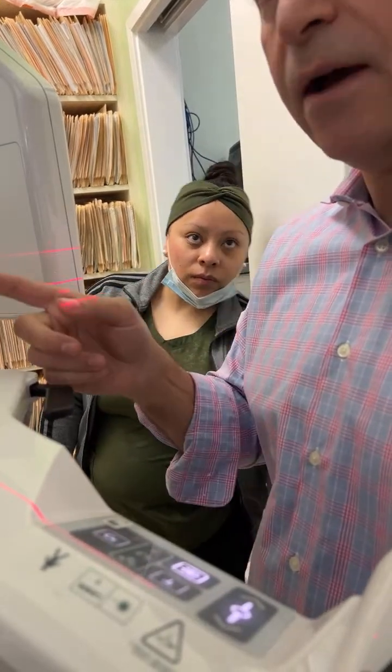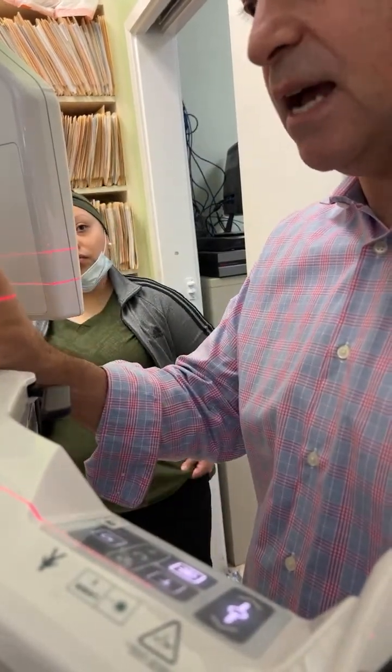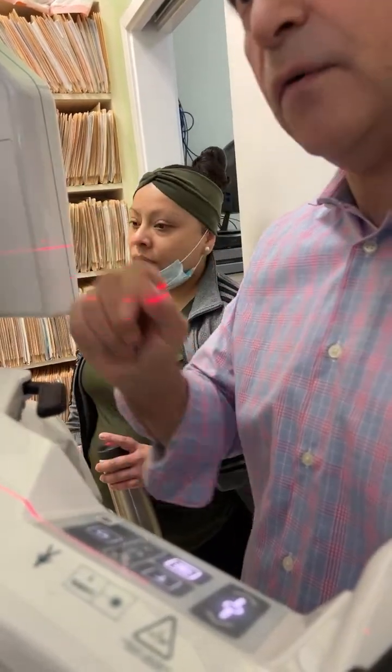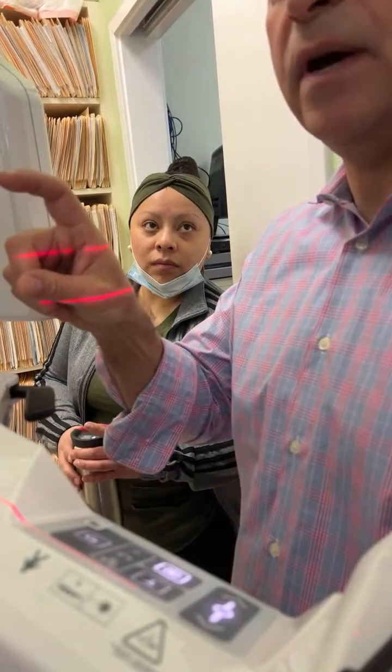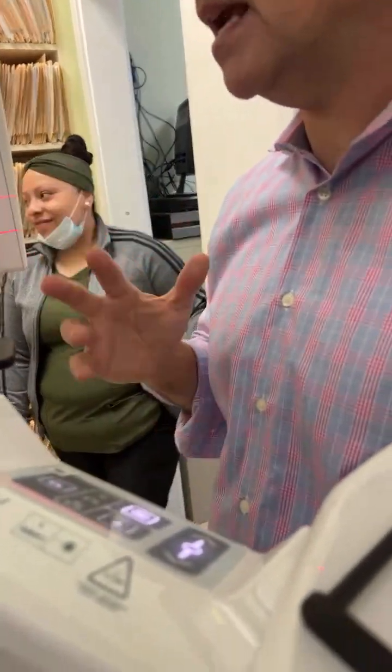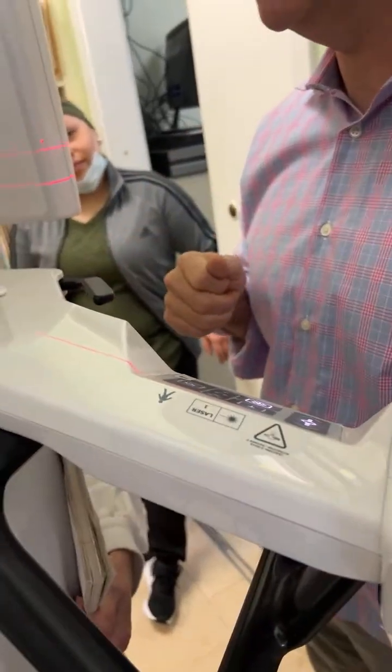And remember, you have the scout. So let's say you decide that's not high enough. I want a little higher. You can go to 6 by 5, 7 by 5, 8 by 5, in the software. That's why I like the scout shot, because you can be precise and only take it once.